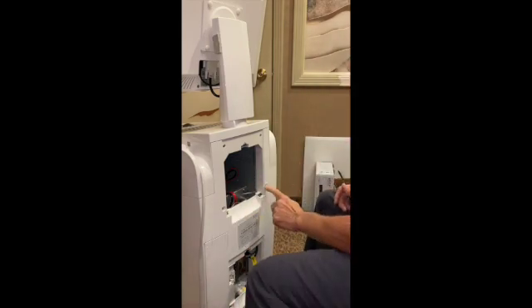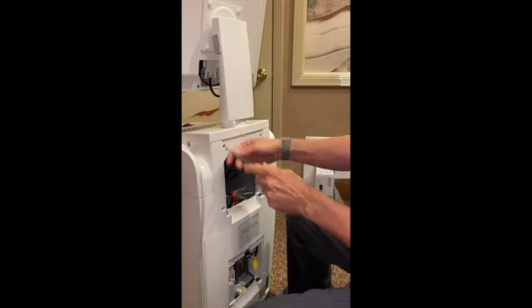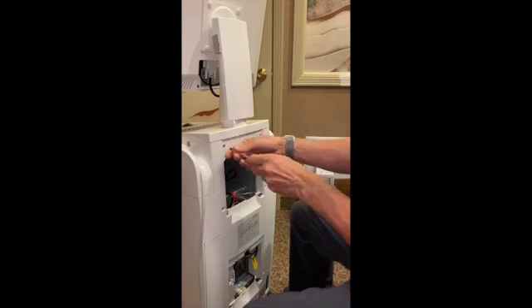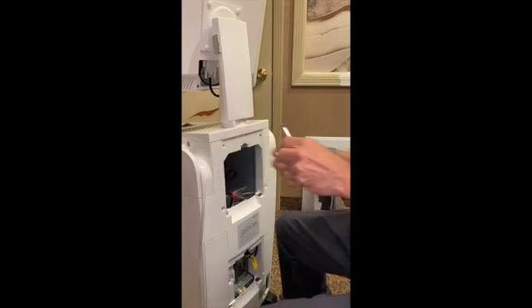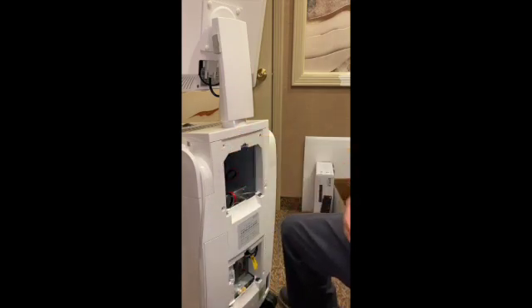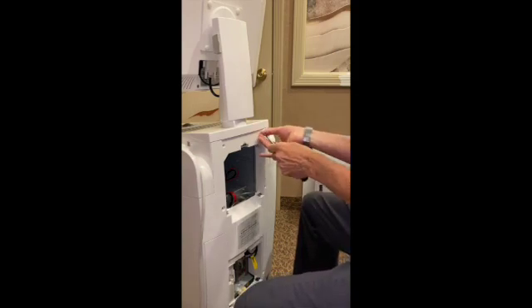Sometimes there'll be a little cover on these — this one didn't have one, but there'll usually be a little nylon cover. You've got to take that flathead and pop those out. Save those and set them aside. In Europe, all these screws have to be covered on electrical gadgets — not necessarily true on electronics in the U.S. But anyway, undo these screws to get this back panel off.